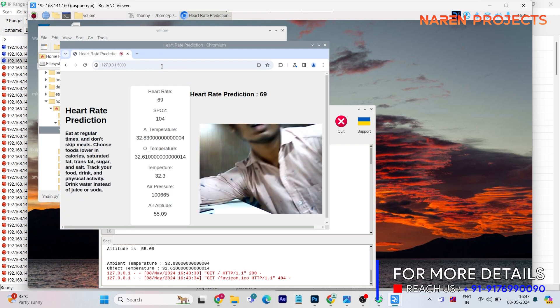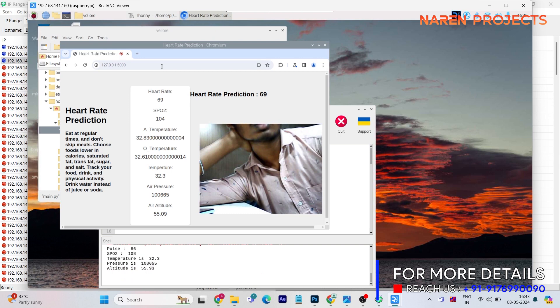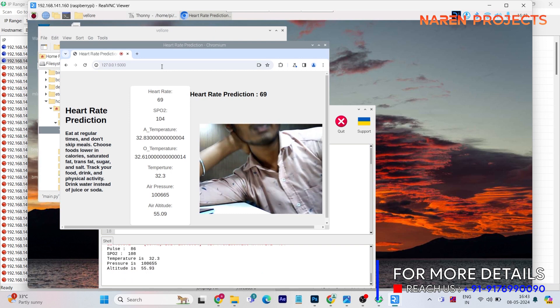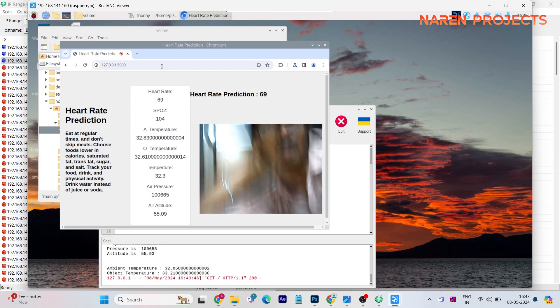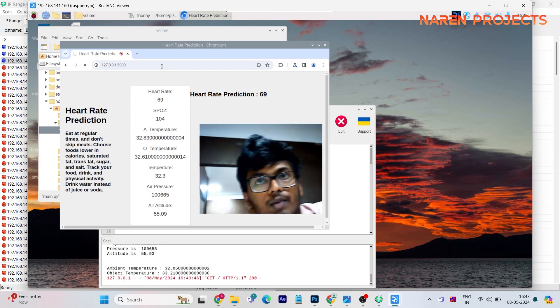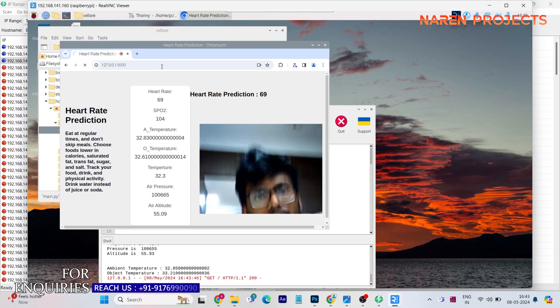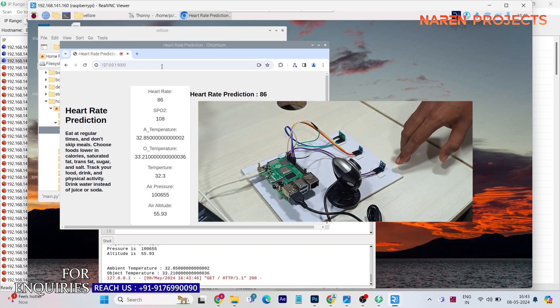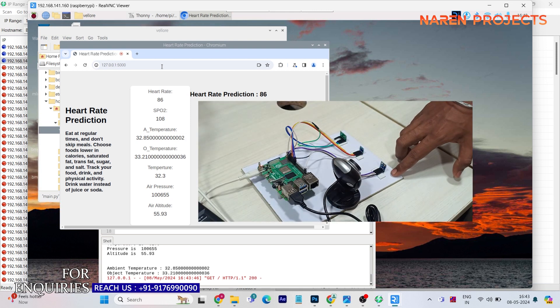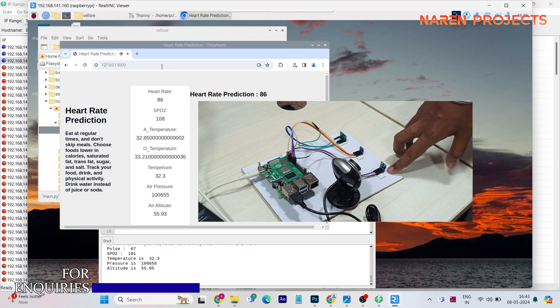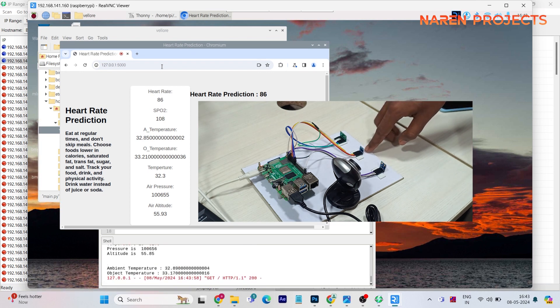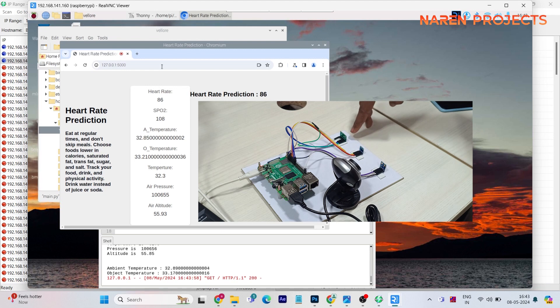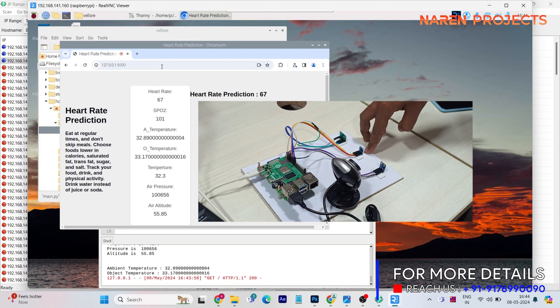And from the sensors I'm going to detect two different temperatures: one is actual temperature, that is environmental temperature, and another one is object temperature. Which person is sitting in front of that sensor will detect the temperature of the particular person, and SpO2 level, air pressure. So complete information of the patients will be observed in a webpage.